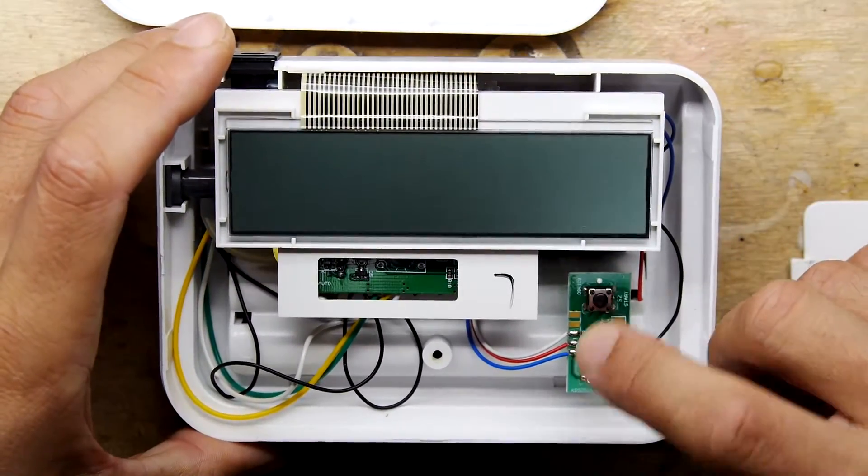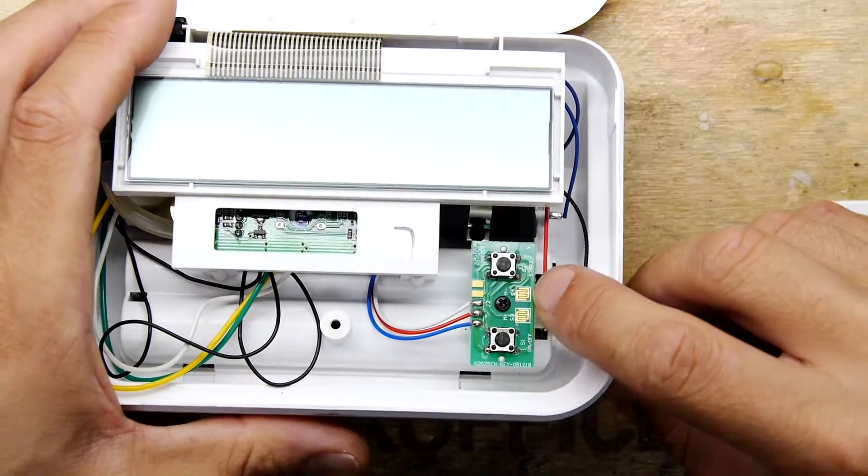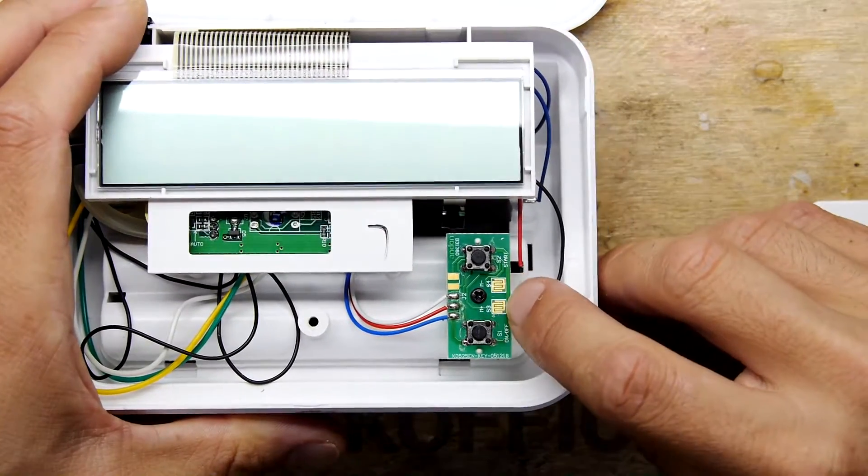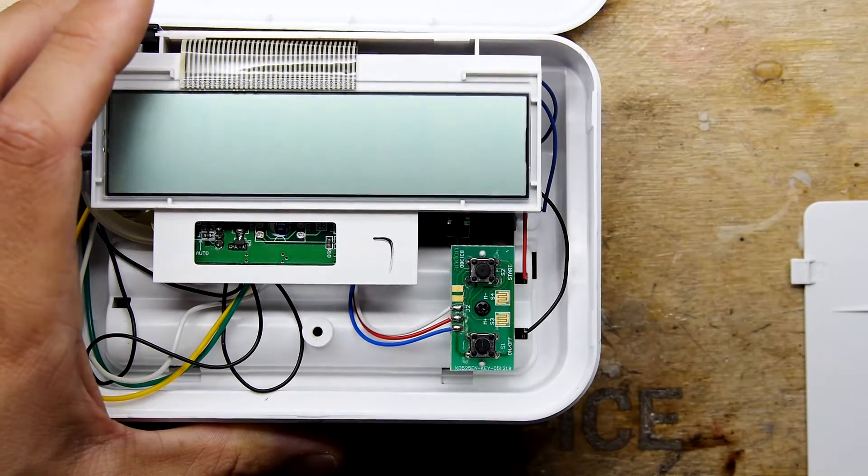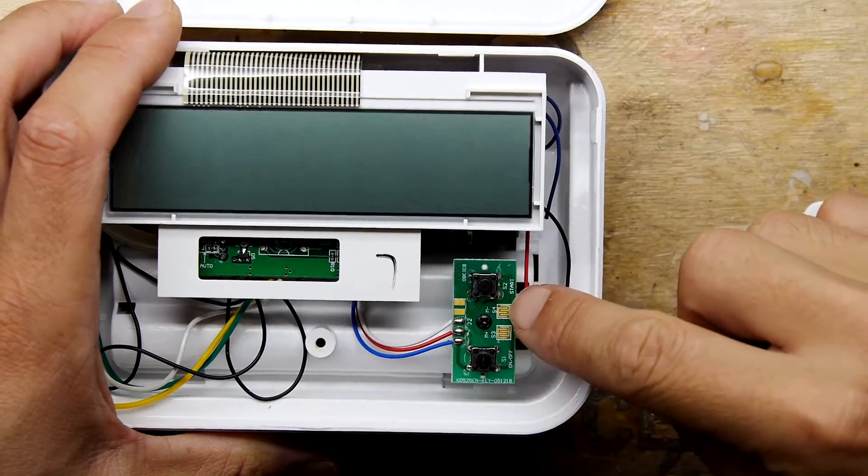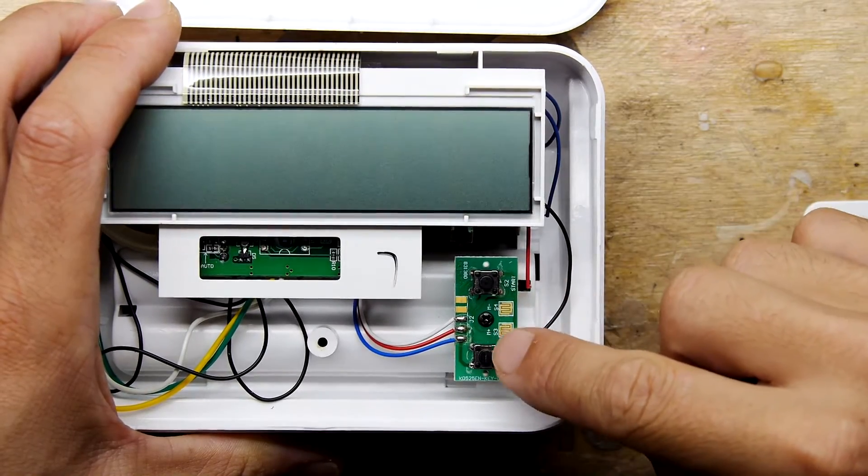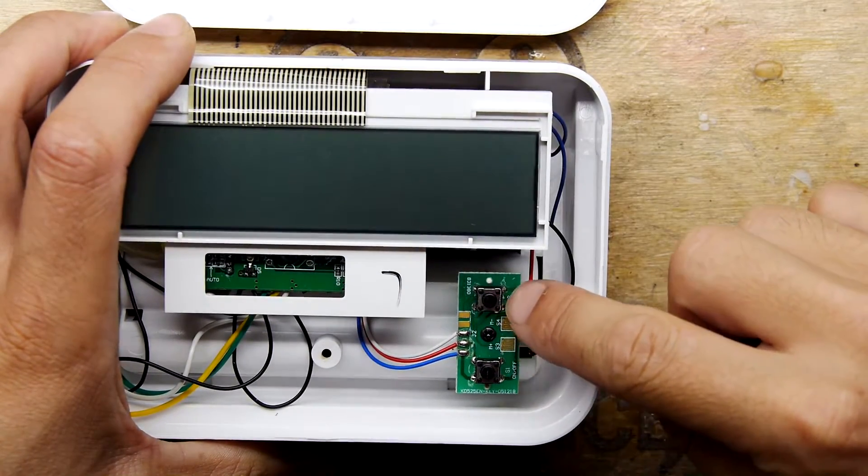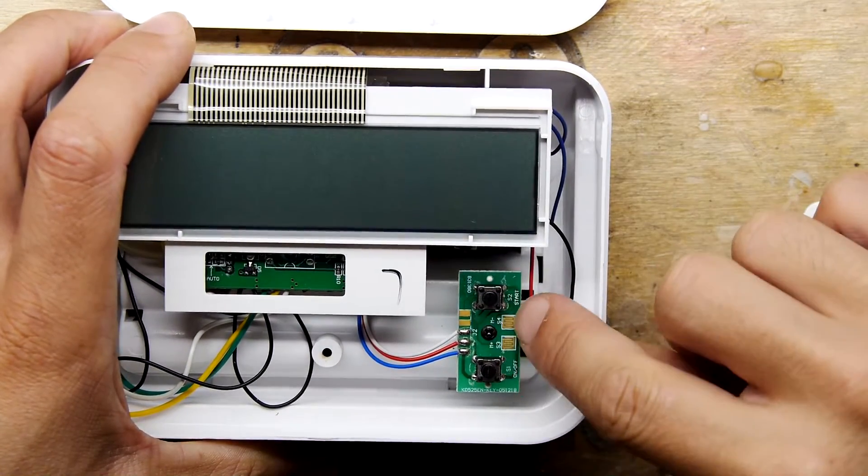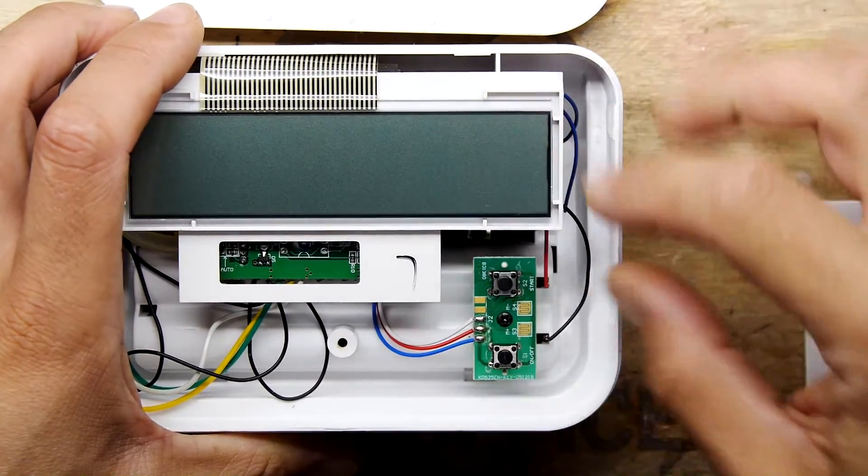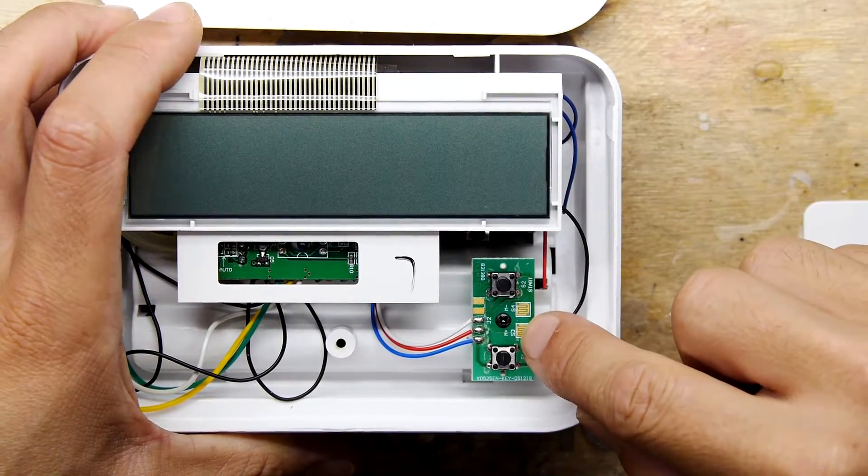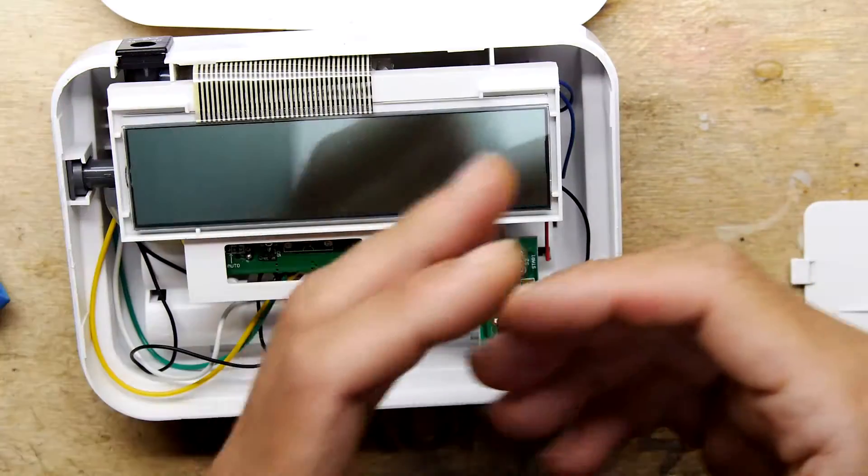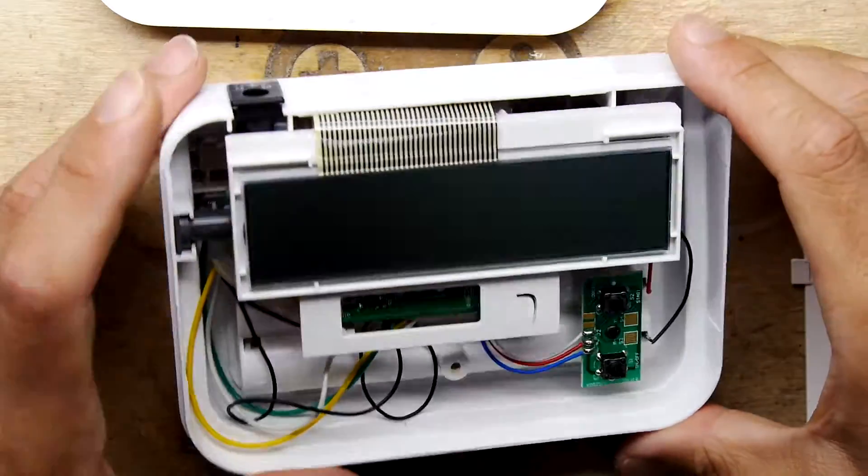There's your on off switch and your start switch, but also on the board, they've got these very small little touch contacts. So they might just reuse, I don't know if they're additional functions or they just are a duplicate of the existing functions for a different kind of system. So they might still use this PCB with something, but like for a much smaller one, little buttons, like a wrist one or something.